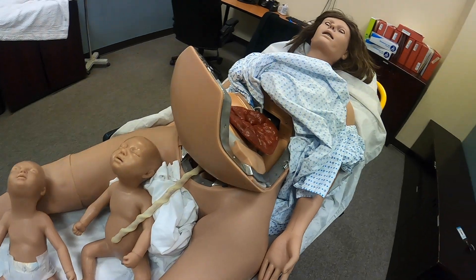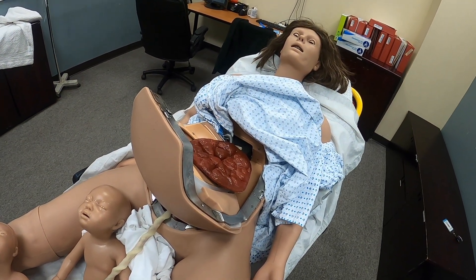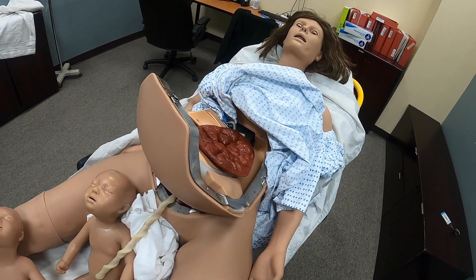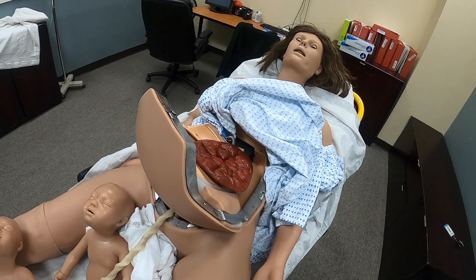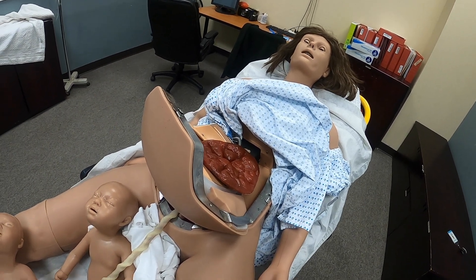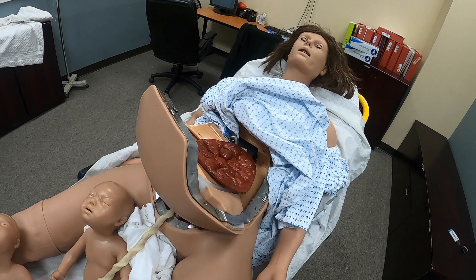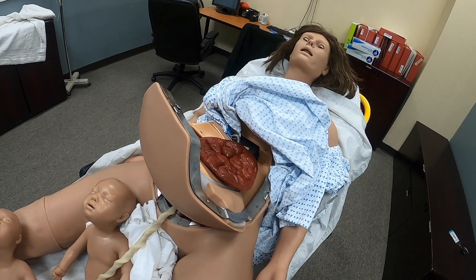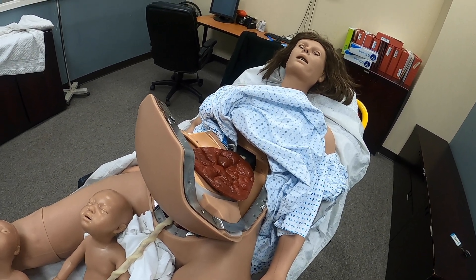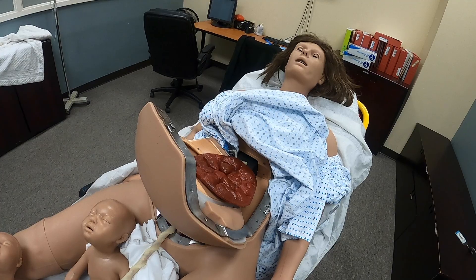So again, this is our birthing mannequin — by far the most used mannequin throughout all of the programs. Students get a very good representation of field deliveries to prepare them for actual deliveries out there in the field.